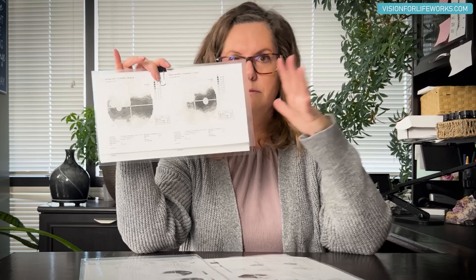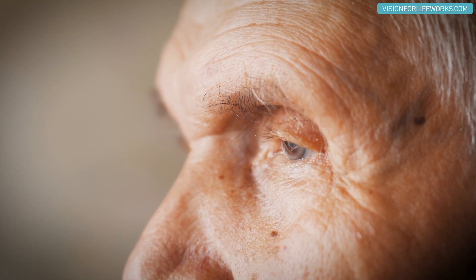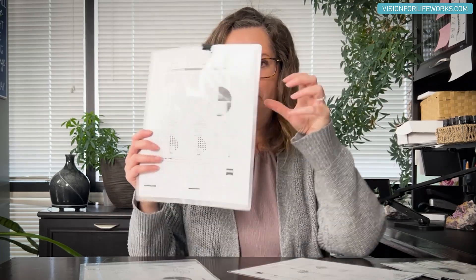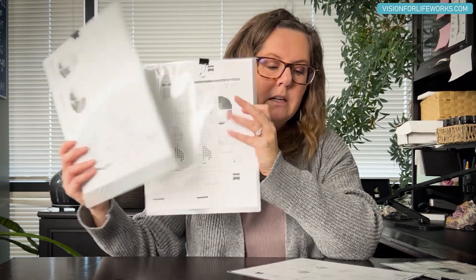So to summarize: the least helpful is that basic grayscale-only field, and right behind that is the dot-scale, which is almost completely worthless. Those two types are not what you want if you've had any kind of vision loss from traumatic brain injury, stroke, glaucoma, optic atrophy, or similar conditions. Your best bet is the 30-2 — that's most preferable. Secondary would be this third machine-based test, and if you really can't have the 30-2, then a 24-2 is not a bad option.